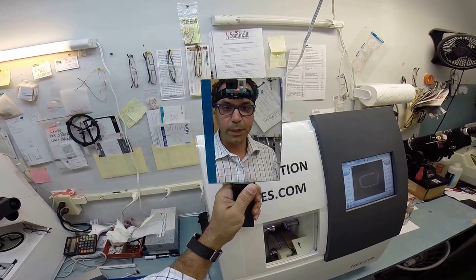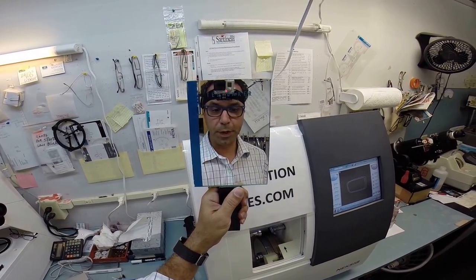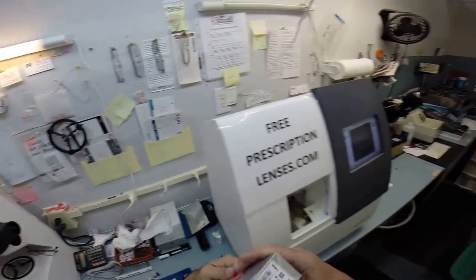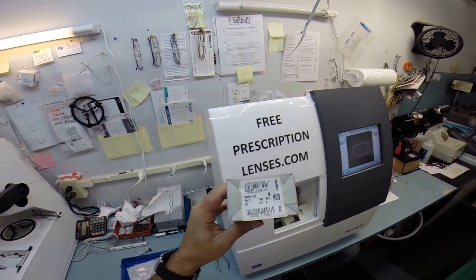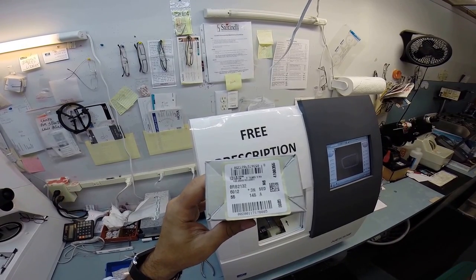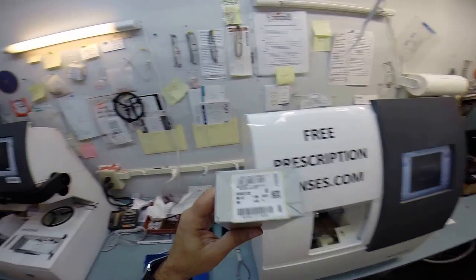Hey Caroline in Lafayette, Louisiana. Matthew here in Durham, North Carolina at freeprescriptionlenses.com and I'm going to show you how I cut a bifocal lens for your Ray-Ban 2132 New Wayfarer color 6012 which is the tortoise beige in the 55 eye size.